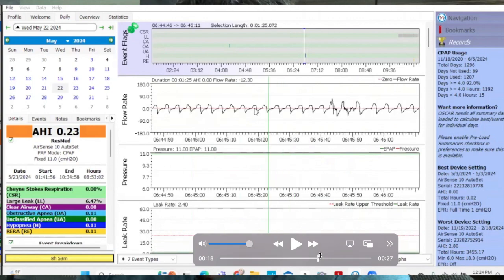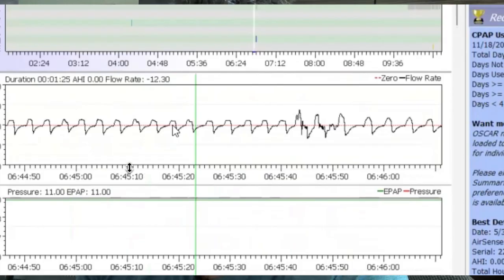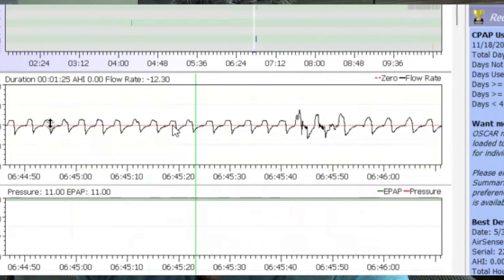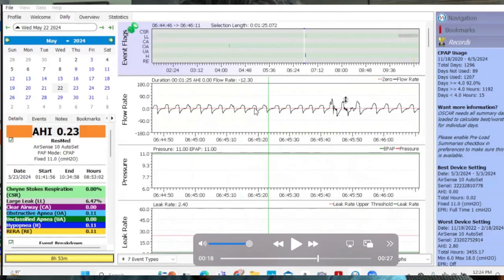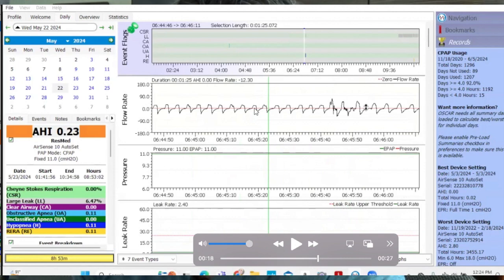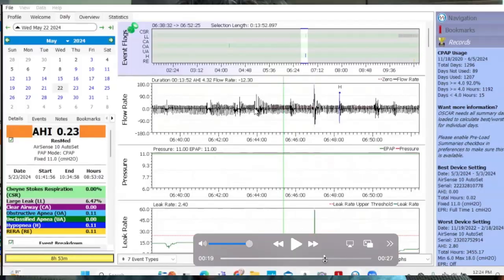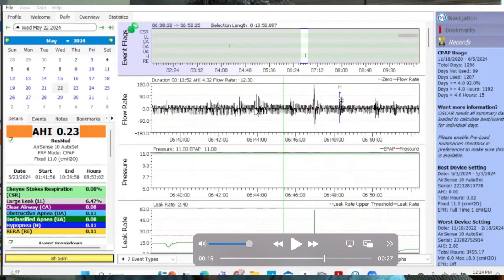So, like right here, we're zoomed in. See how some of these waves are nice and popped at the top, upside down U-shape? But then over here, they're like very much collapsed. And then flat, flat, flat, flat, flat, awakening. Now, this isn't being flagged as anything. It's not being flagged as a respiratory effort-related arousal or a hypopnea. According to the machine, they're doing fine. But they're not doing fine. They're waking up a lot. So, if we zoom out, really only one of the nine is being flagged as anything.